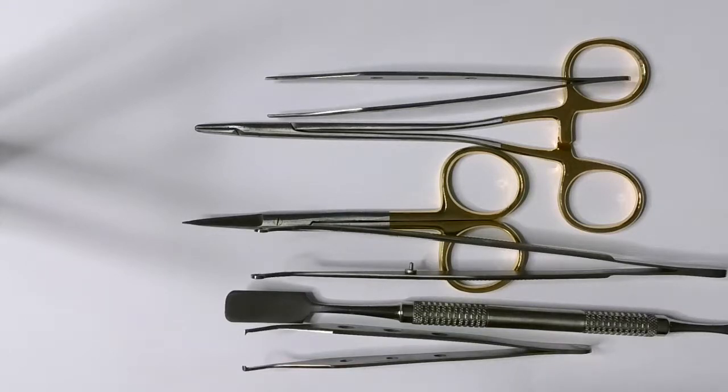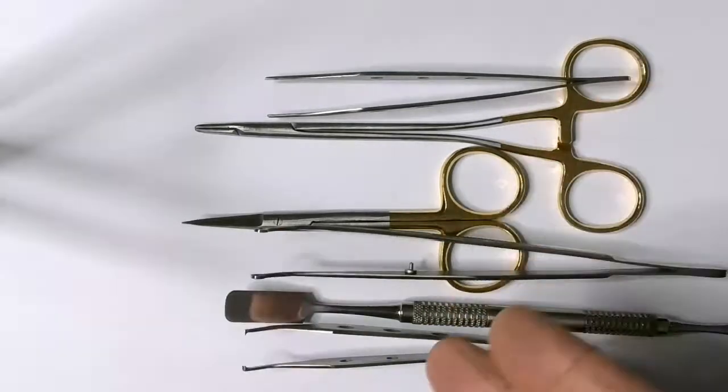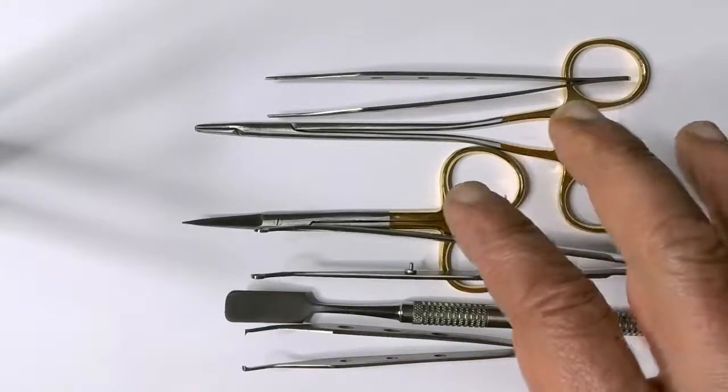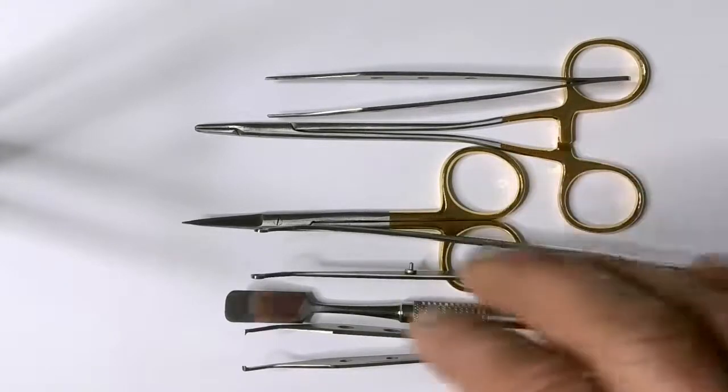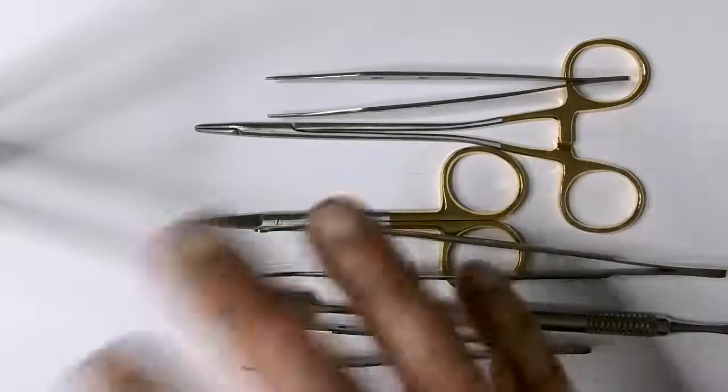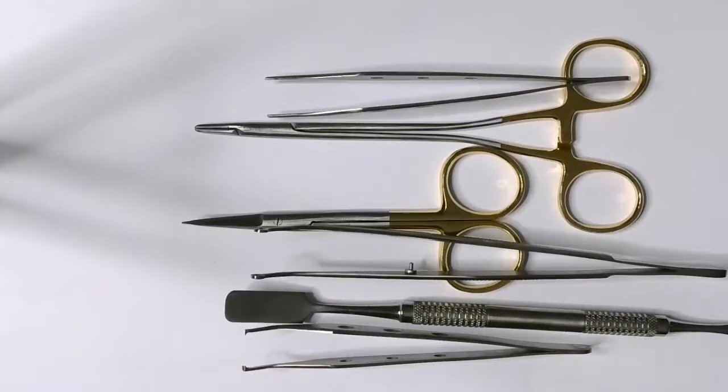Now the instruments that you can see in front of you here are some essential instruments that I use during suturing. It can vary between one practitioner to another. We all have our own little toys that we like to use, however, let's just look at them.